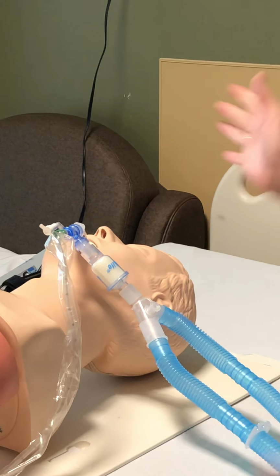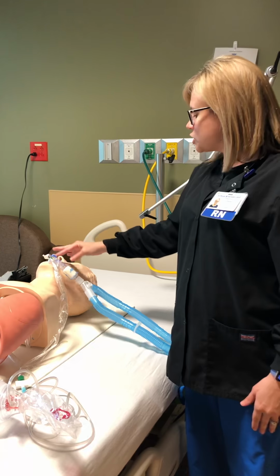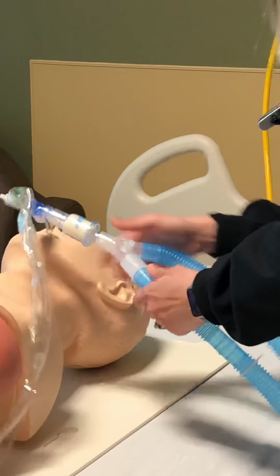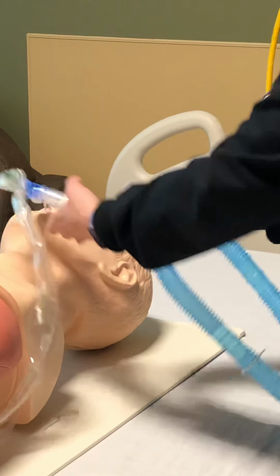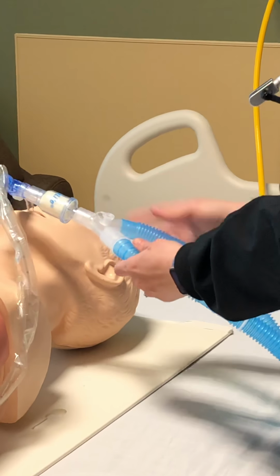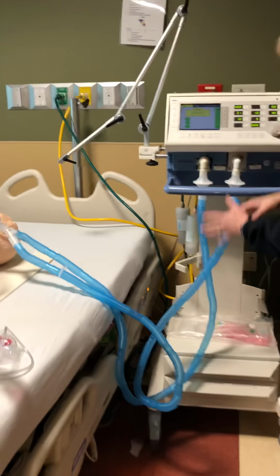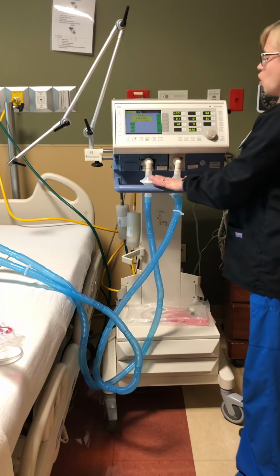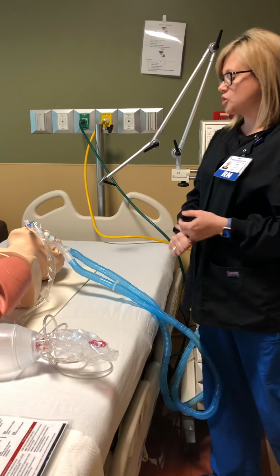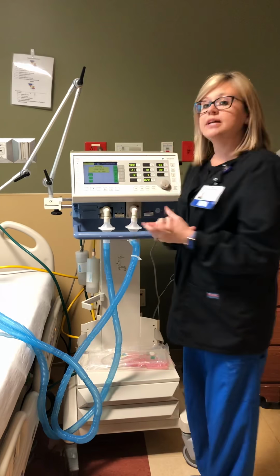So let's recap. You walk in the room, they're sound asleep, you see no secretions. Next, we want you to check all your tubing. Eye trace. Make sure the lines are secured. Sometimes our vents can come unplugged, and if they do, the alarm will obviously go off on the ventilator. So check all your connections. Make sure they are on good, and follow them all the way back up to the ventilator. Okay? Once you've checked your lines and you've seen that the patient's asleep and there's no secretions that need to be suctioned out, but the ventilator is still alarming, you need to go ahead and call for help.